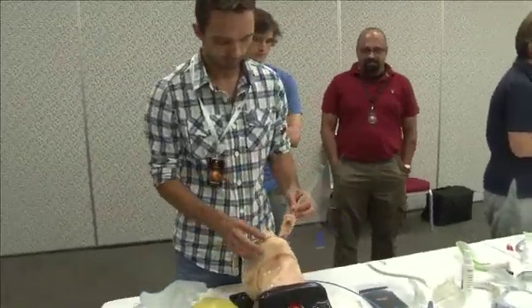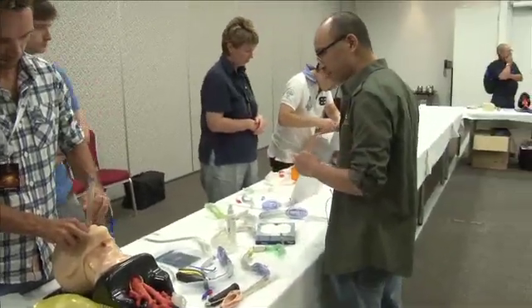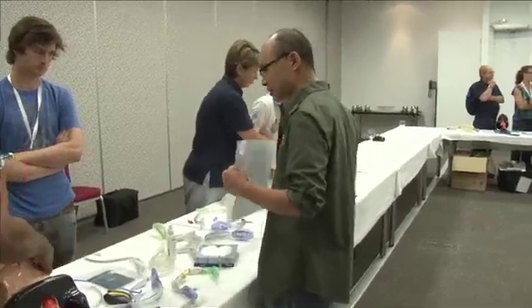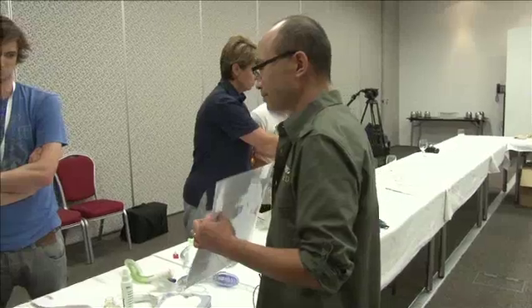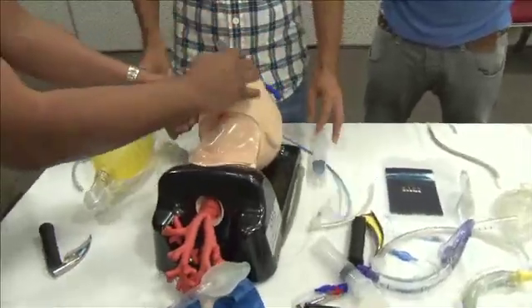Now, for those waiting - on the vortex, you'd see here you have a head and neck manipulation. So if you're having trouble ventilating with your LMA Classic, what's a head and neck manipulation that is useful? Any thoughts? Jaw thrust again is going to help a bit. Yeah, that's my favourite - a jaw thrust.